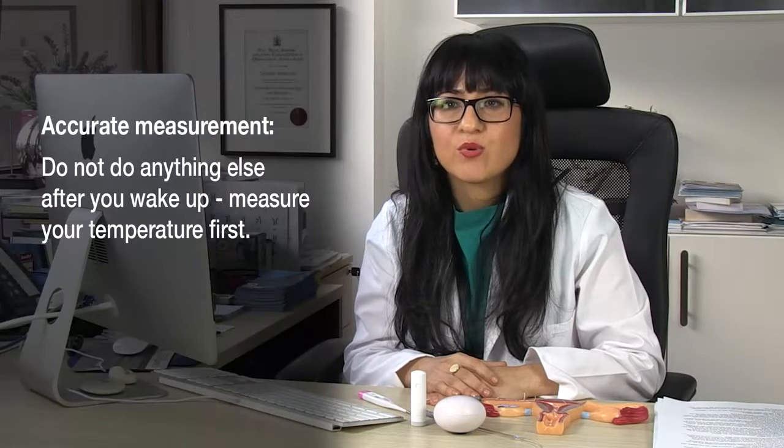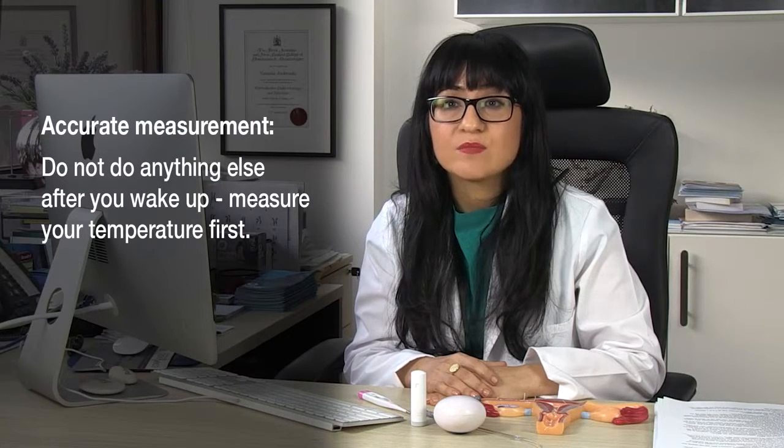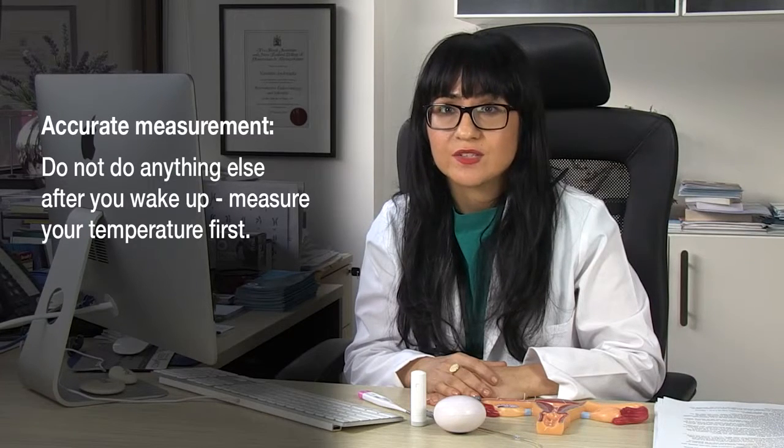Your basal body temperature is really quite sensitive. That's why it's really important that as soon as you wake up in the morning and you've opened your eyes — even before getting up or moving out of bed — that you've checked it. Don't go to the toilet, don't make yourself a cup of tea. Check your body temperature first.